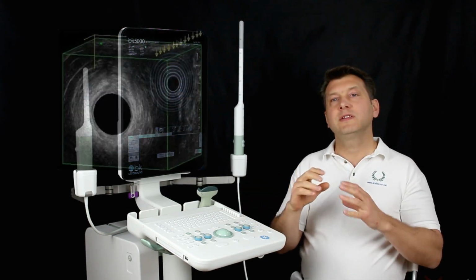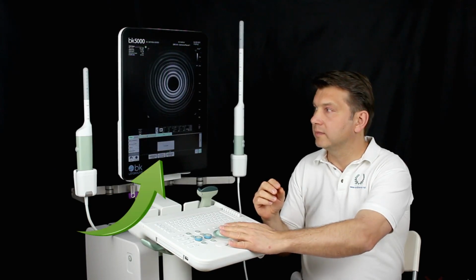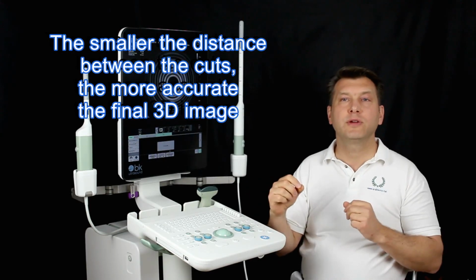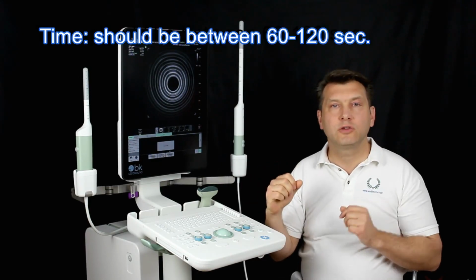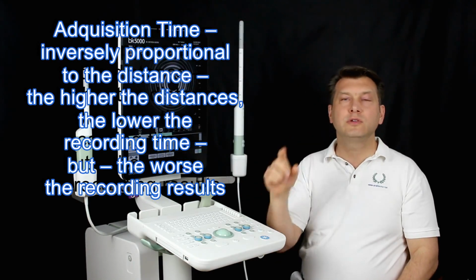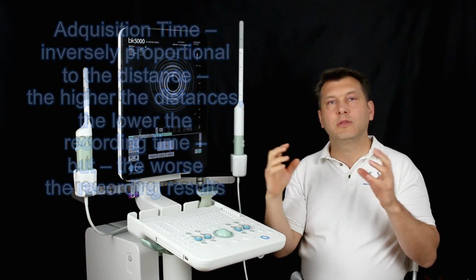Distance. The distance between the individual cuts, which we can choose in a 3D card by clicking on spacing, should be chosen as low as possible. This provides more information in the image. The quality of the 3D box is increasing. Time. It should be between 60 and 120 seconds. If the image distances and the resolution are reduced, the recording time increases automatically.